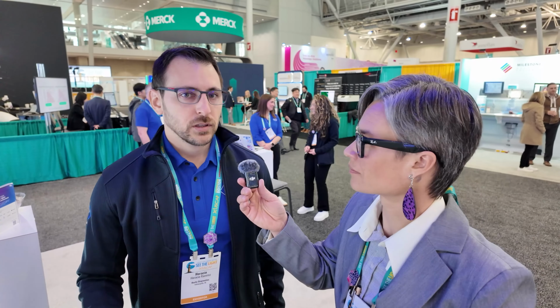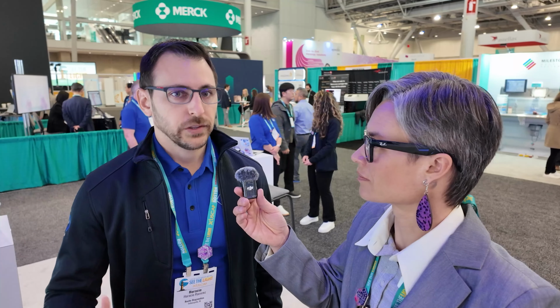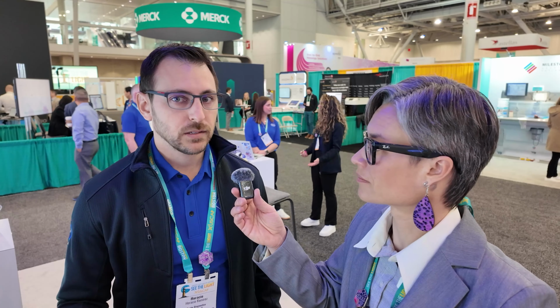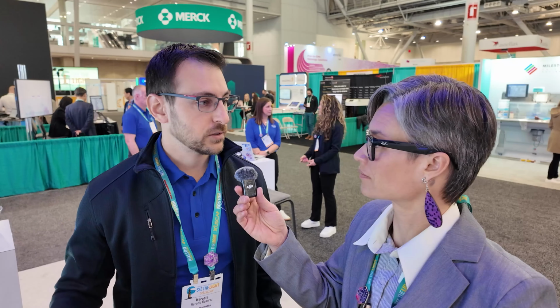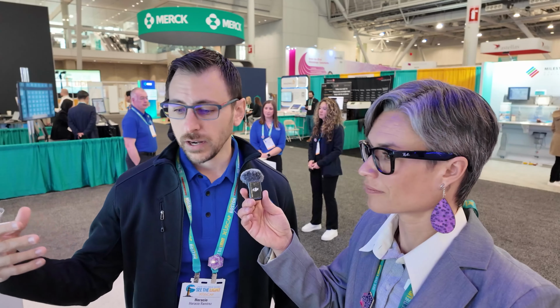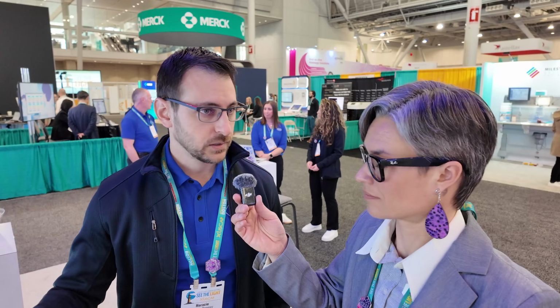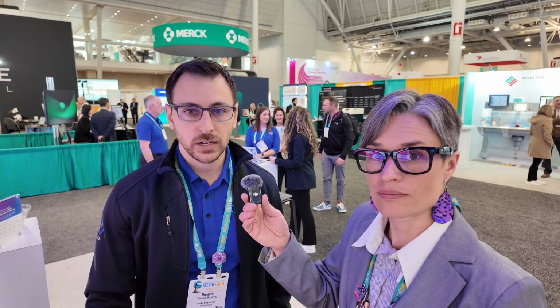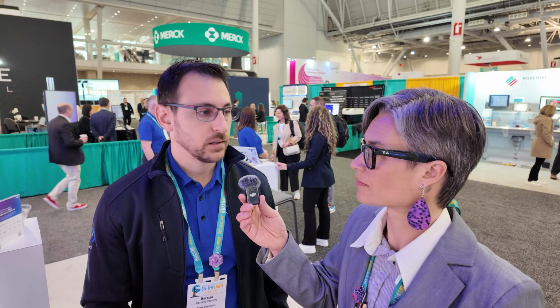We are trying to build it as a platform, and we launched what we call the open environment. That basically allows third-party vendors to plug in their software or image analysis software and integrate it into our platform. Right now we have announced partnerships with several companies, and on the market at this very moment we have products from both Ibex and PathAI. These image analysis algorithms are fully baked into our solution.